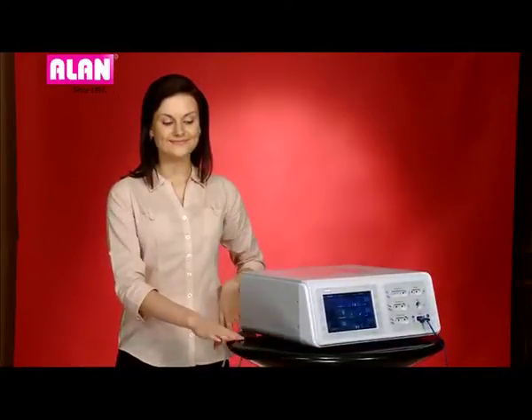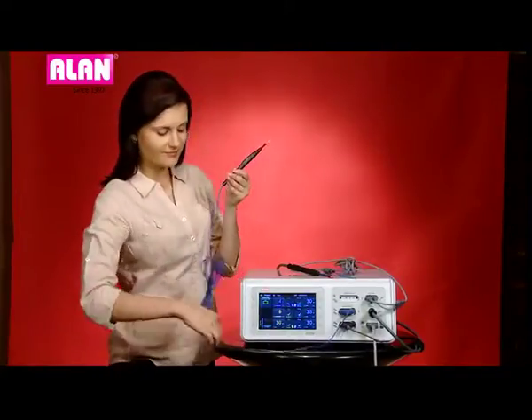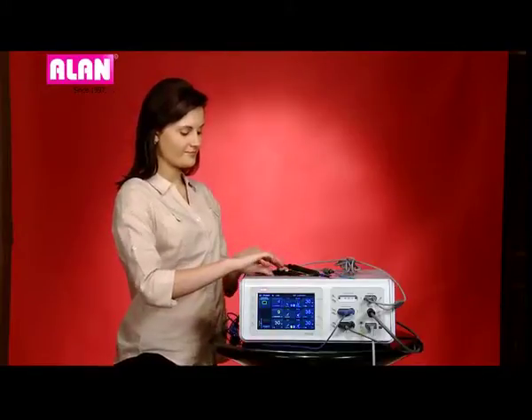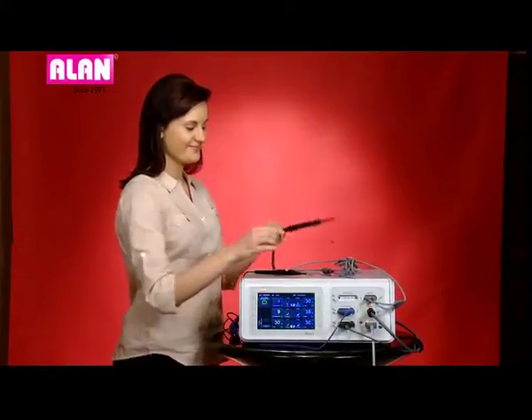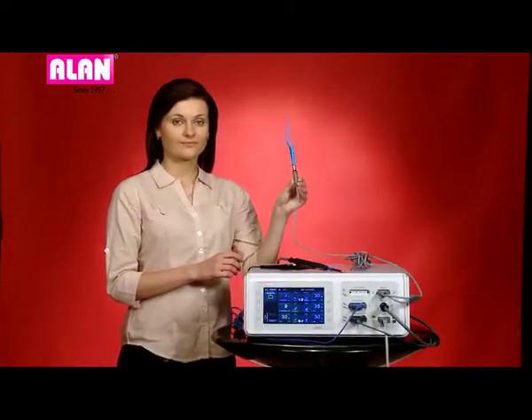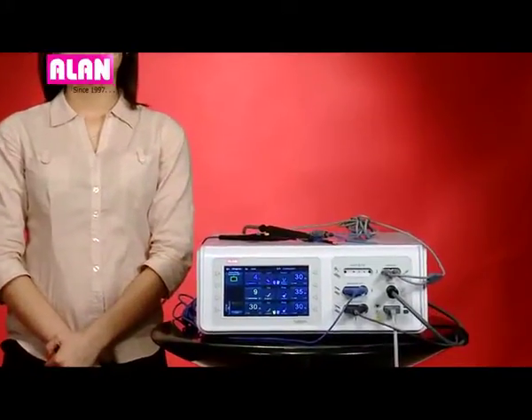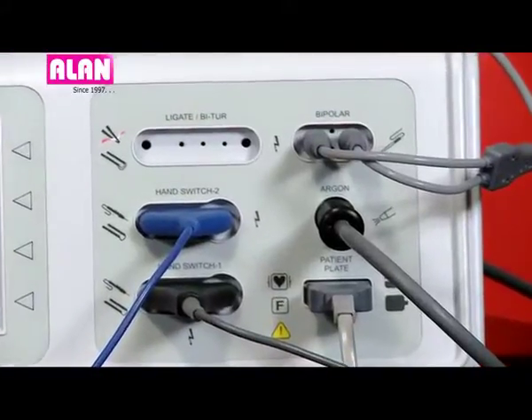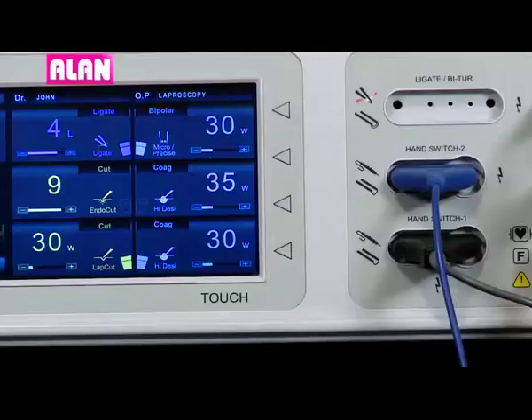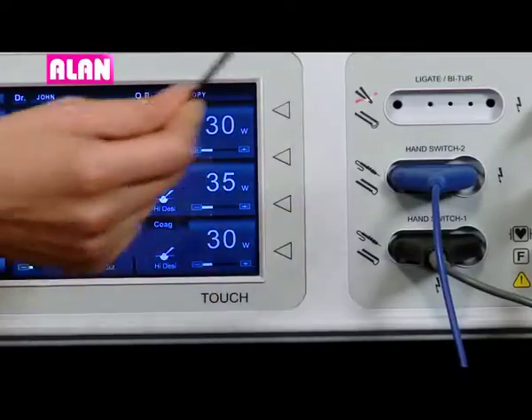Let's see the front connections. The handswitch pencil is connected to handswitch port number one. The argon-enhanced handswitch pencil is connected to handswitch port number two as well as the argon output. The bipolar forceps is connected to the bipolar output port. Footswitch selection is provided on the main screen itself, and the selection can be made for handswitch port number one or number two.